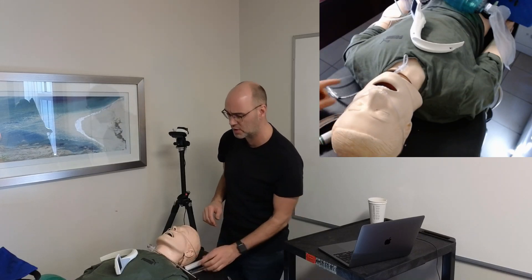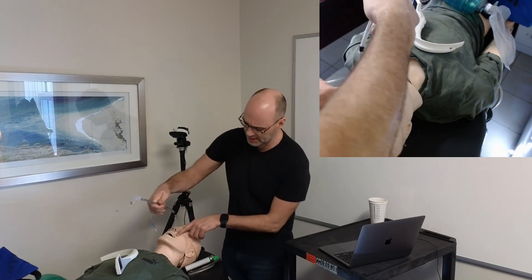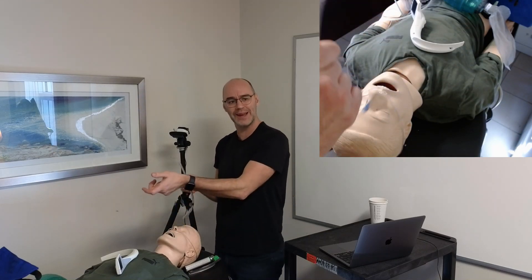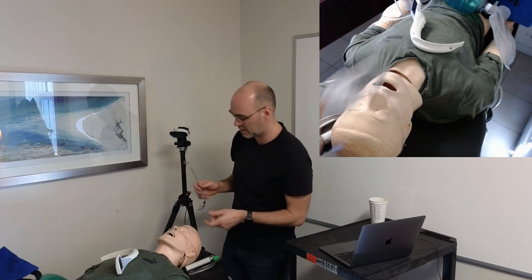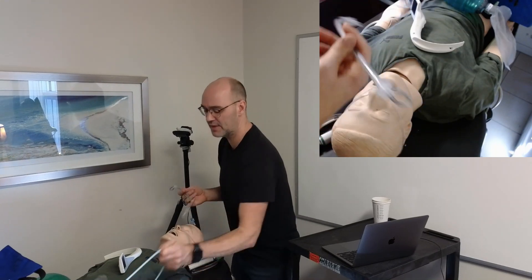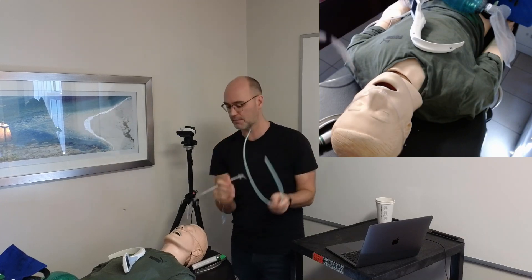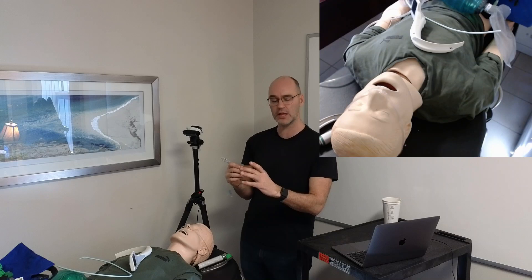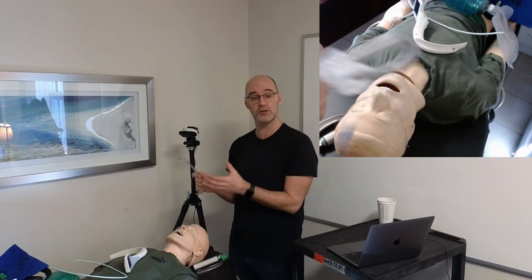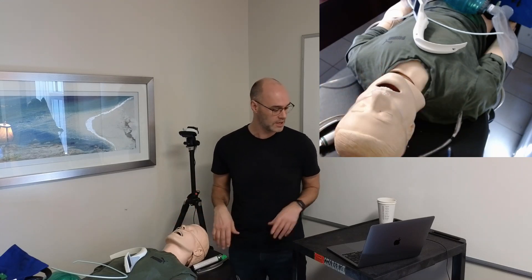If you're using a stylet, it should be inside the tube and shaped like a hockey stick — curved at the tip — so you can get the tube up anteriorly toward the ceiling. The curve should be at the distal end. A bougie should similarly have that tip oriented upward. Pocket bougies are preferred because they come pre-bent in good shape. Tubes and anything going into the trachea should be kept sterile inside the sterile packaging.